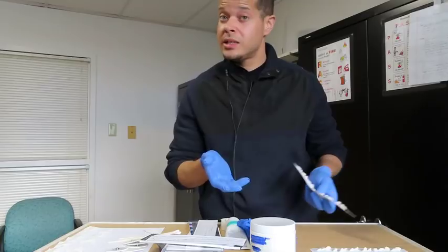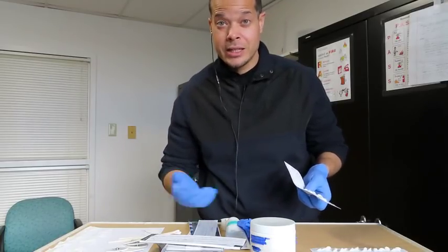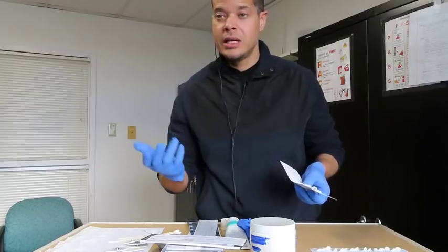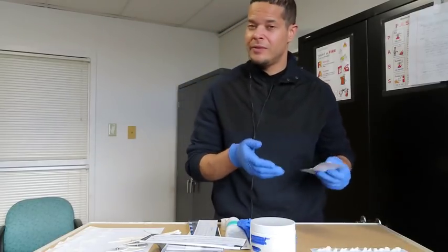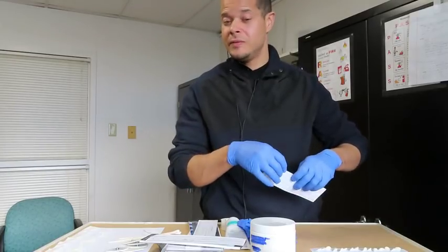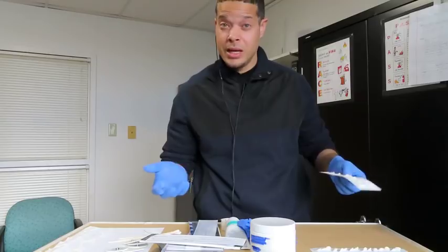But this whole system does take practice. It's not something where an older tech that's been doing setups for years is going to find it easy to get used to, based off of having a certain routine and pattern from doing it for so many years. But for me, this has been my basic setup for many years.